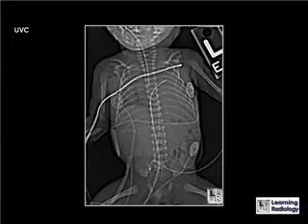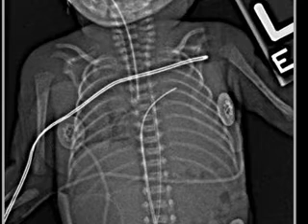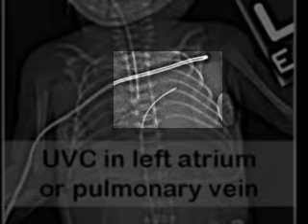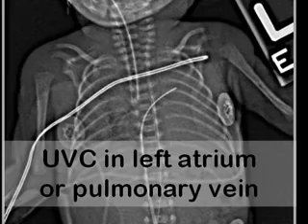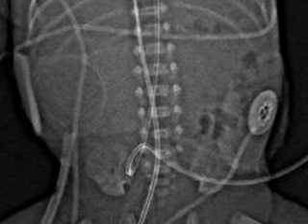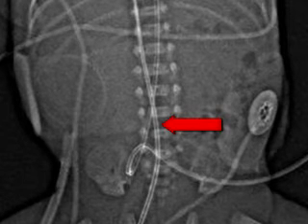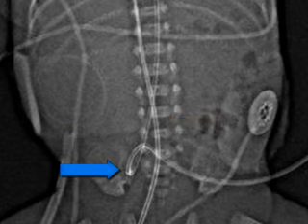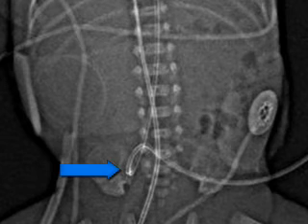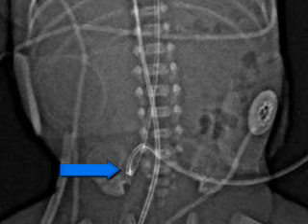The tip of this umbilical venous catheter is extending into the left atrium — it could be extending into a pulmonary vein — but in either case it is in an anomalous position and should be withdrawn. It's important to recognize that the umbilical venous catheter enters the umbilicus and heads in a more or less straight course upward, whereas the umbilical arterial catheter first dips down into the internal iliac artery and then begins its upward course through the aorta.